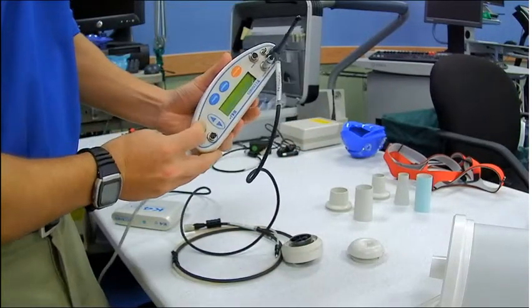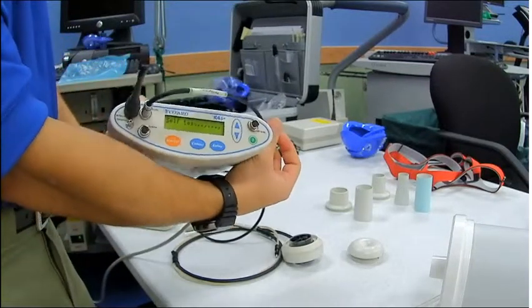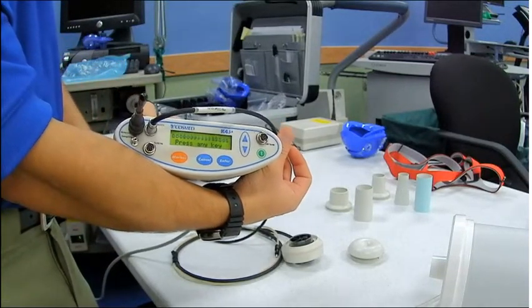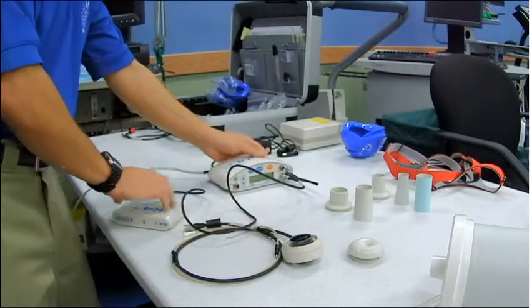And once you've done that, you can go ahead and turn the system on. It will power up. If you don't touch anything, it'll do its regular optimal warm-up. That's actually what you want it to do.